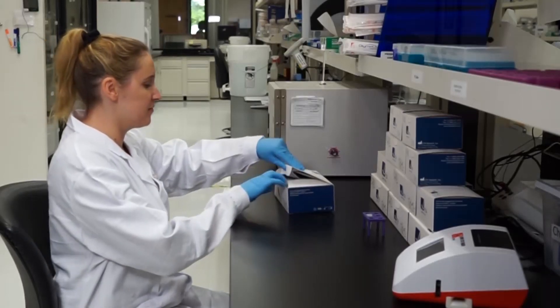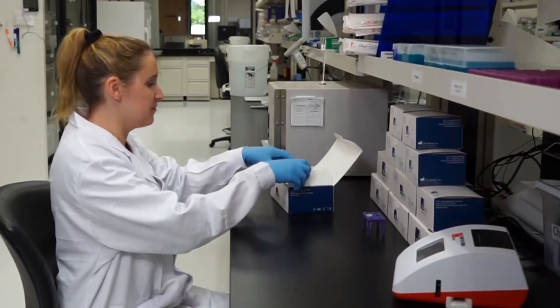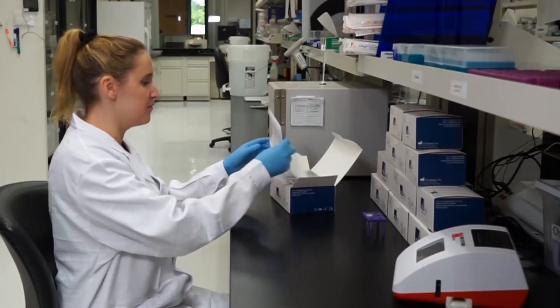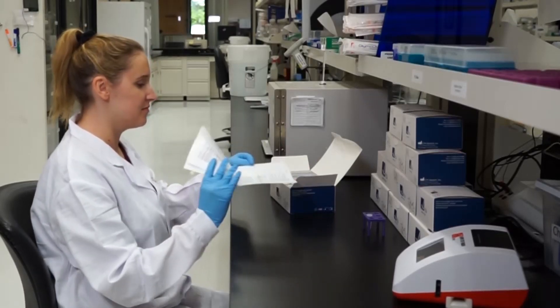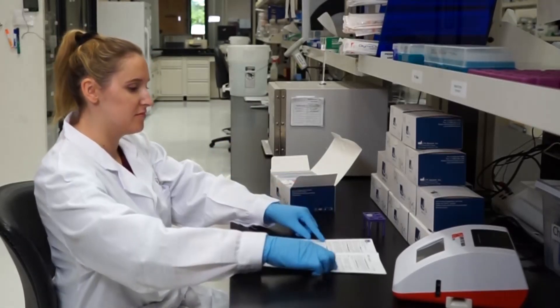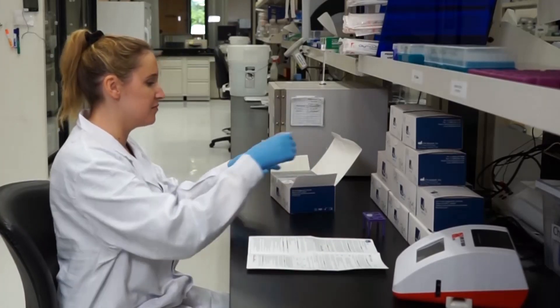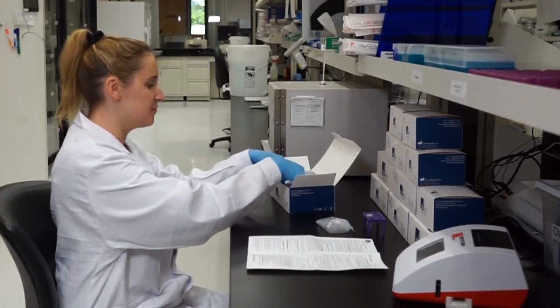Let's take a look at the contents of the test kit. Our kit includes one package insert, plastic droppers, two sample diluents, and an individually sealed foil pouch.